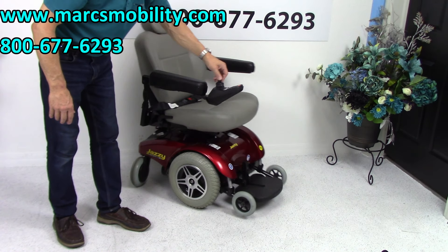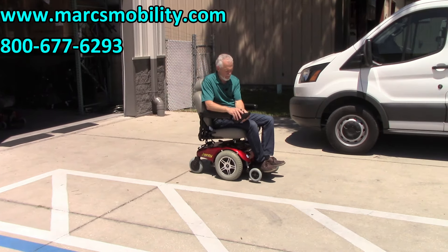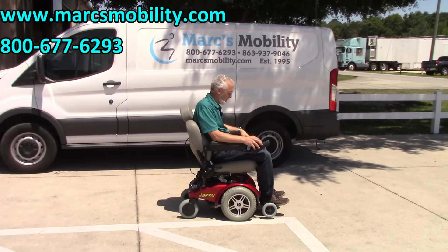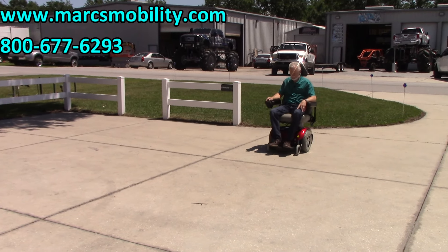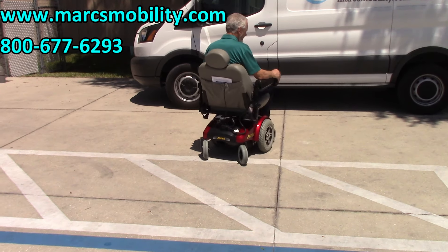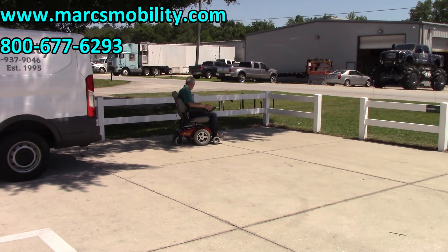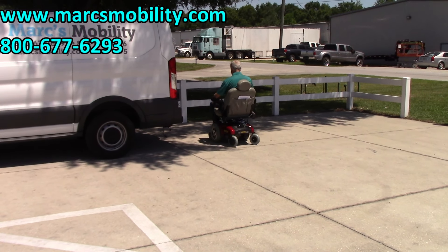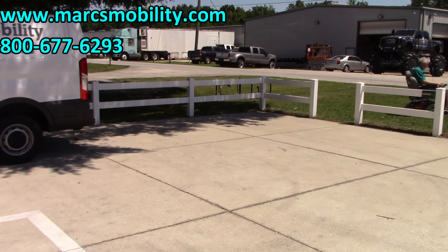If you're looking for a beautiful power chair, this is a really nice one — very easy to drive. Nothing fancy about this chair; very dependable and very quiet. I can't even hear the chair unless I go over an acorn. Going through the grass.